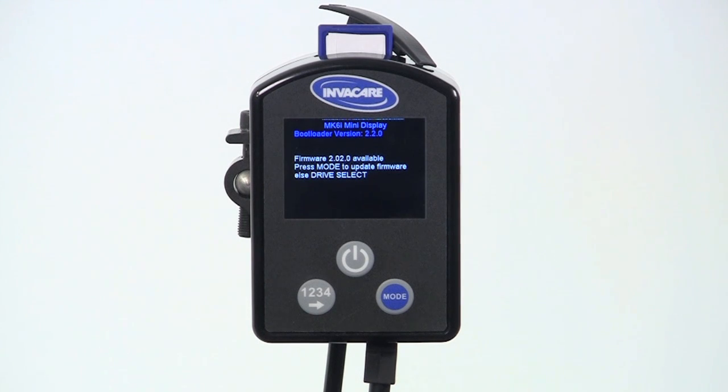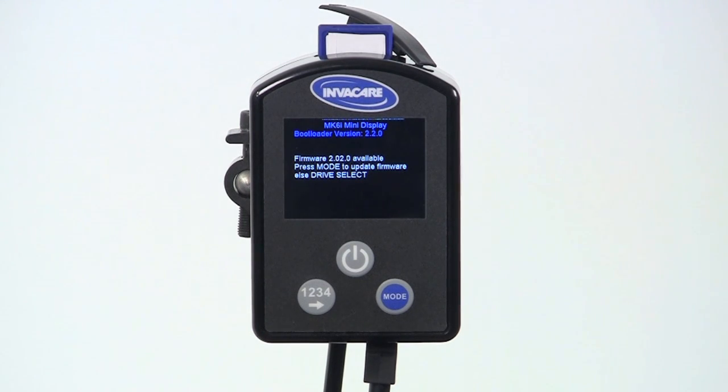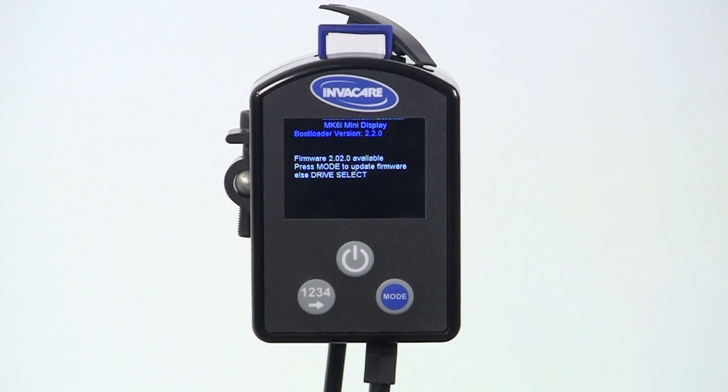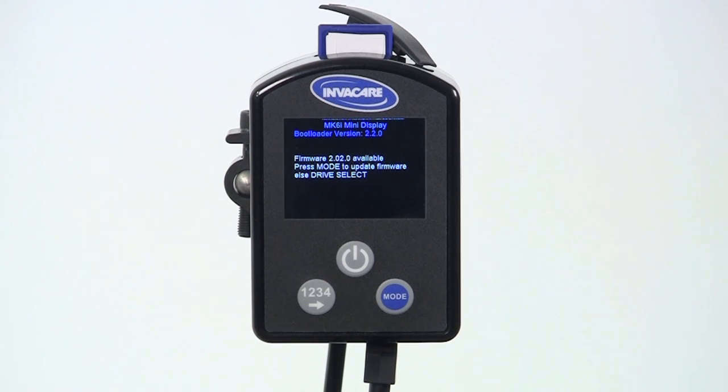To bypass the update, press the drive select toggle, switch, or button. To begin the update, press the mode button.